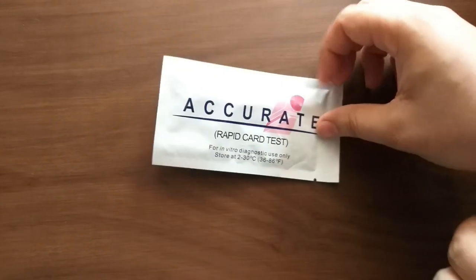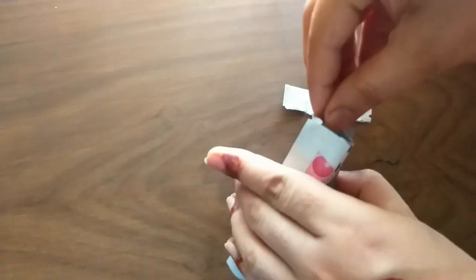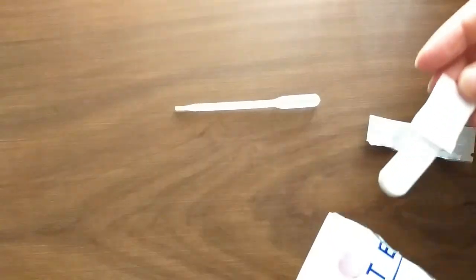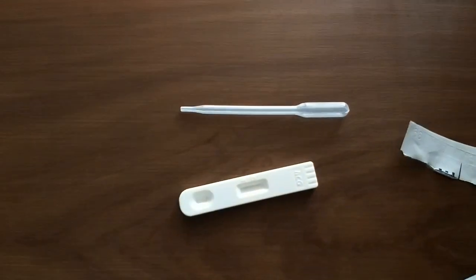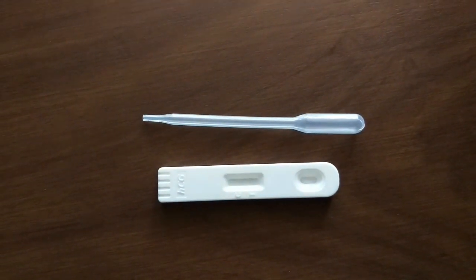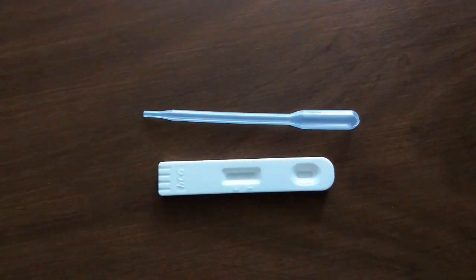This is the Urine Pregnancy Test Kit. You will open the packet and take out a dropper. Inside the packet you will find a dropper and the Urine Pregnancy Test Kit.